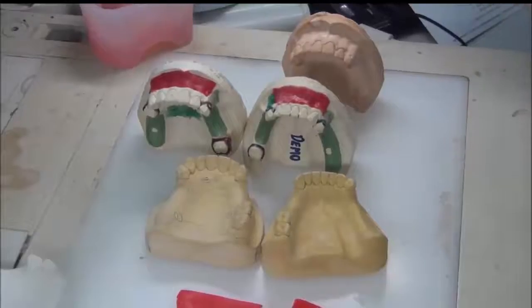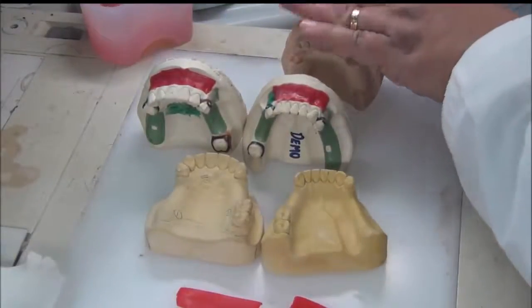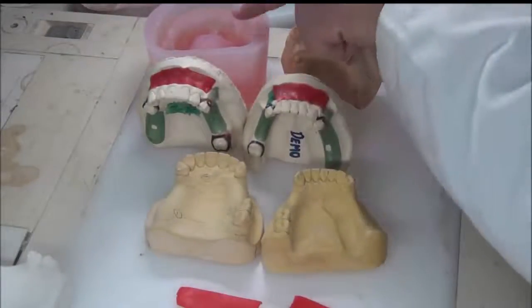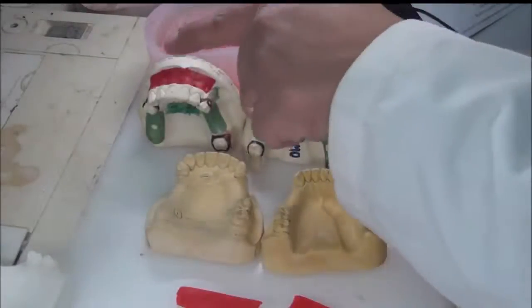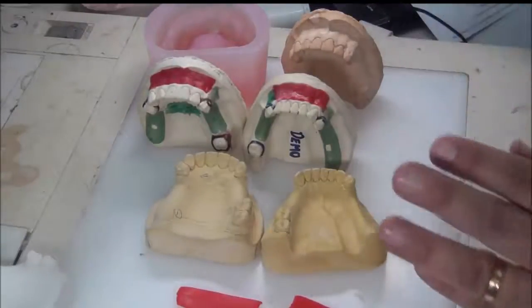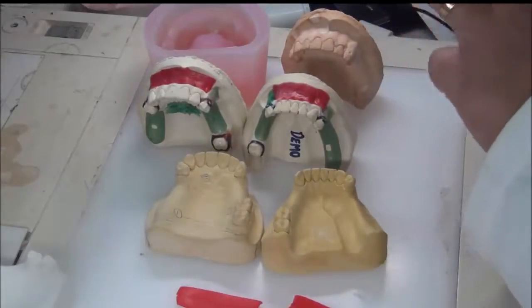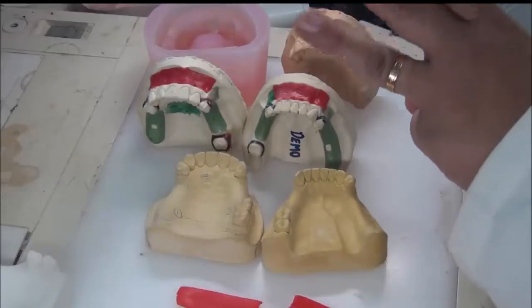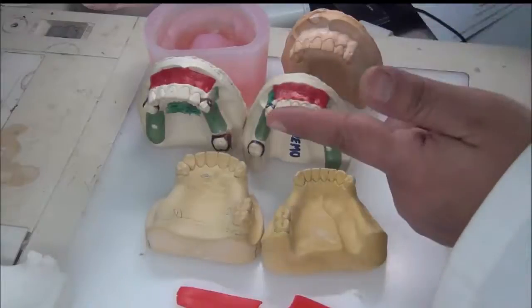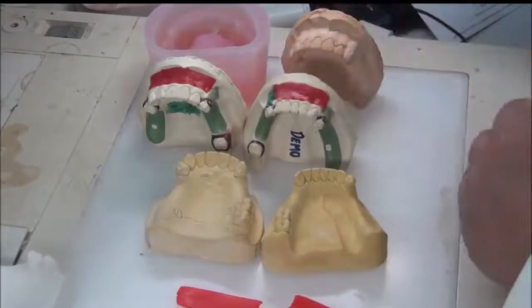We need to convert the secondary cast into the refractory cast by duplication. Before putting the cast into duplication, we pass through a wax-addition step. All additions are wax, but different types with different names depending on function: block out wax, shaped wax, and relief wax — three types, three names.